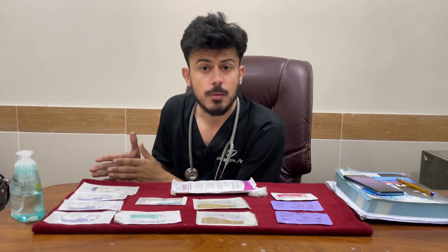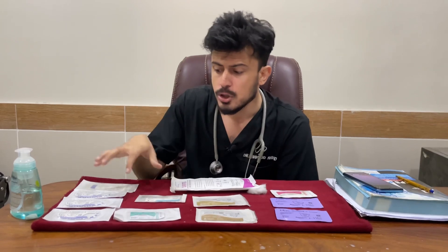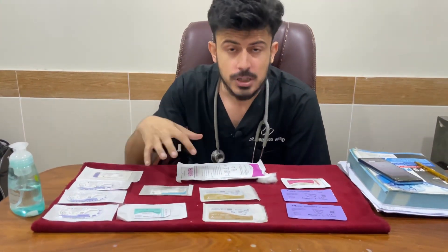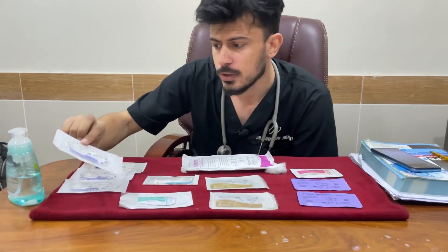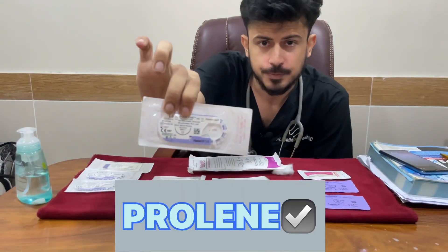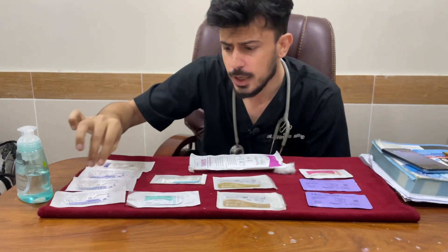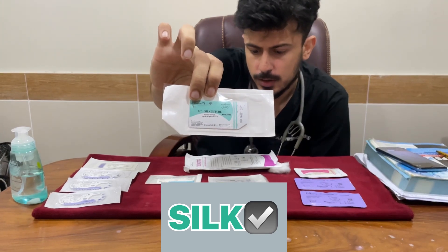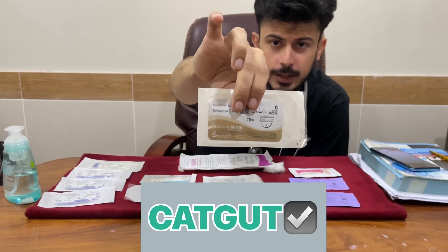There are some sutures here which I will be sharing in detail with you. If you see, this is the Prolene — I will consider it in a while more deeply. This is a silk suture, and this is a cat gut suture.